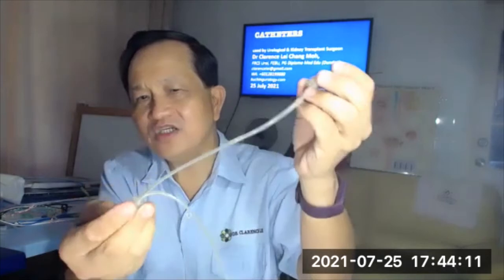Urinary incontinence can be treated by various modalities. One of the most important is the artificial urinary sphincter, AUS. This goes around the bulbar urethra or the bladder neck and is under tension all the time. When the patient wants to pass urine, he presses a button here and the pressure drops, allowing urination. Afterwards it refills slowly by itself from a reservoir placed in the retropubic space.